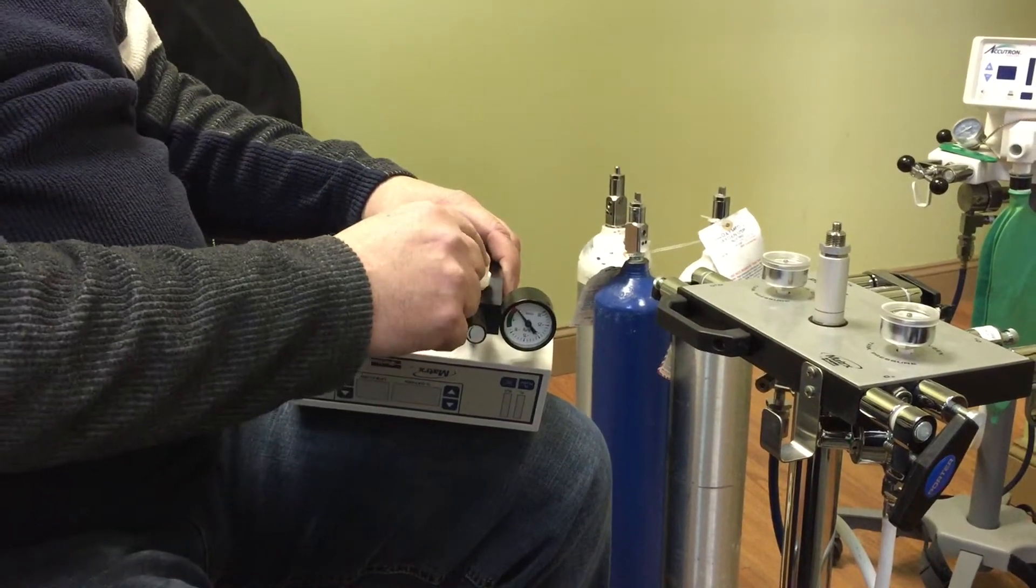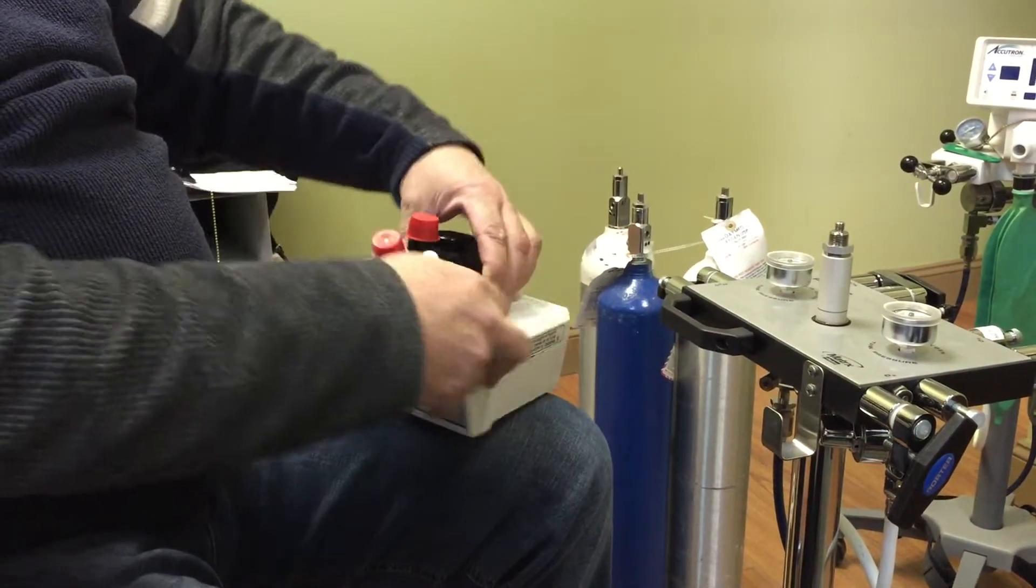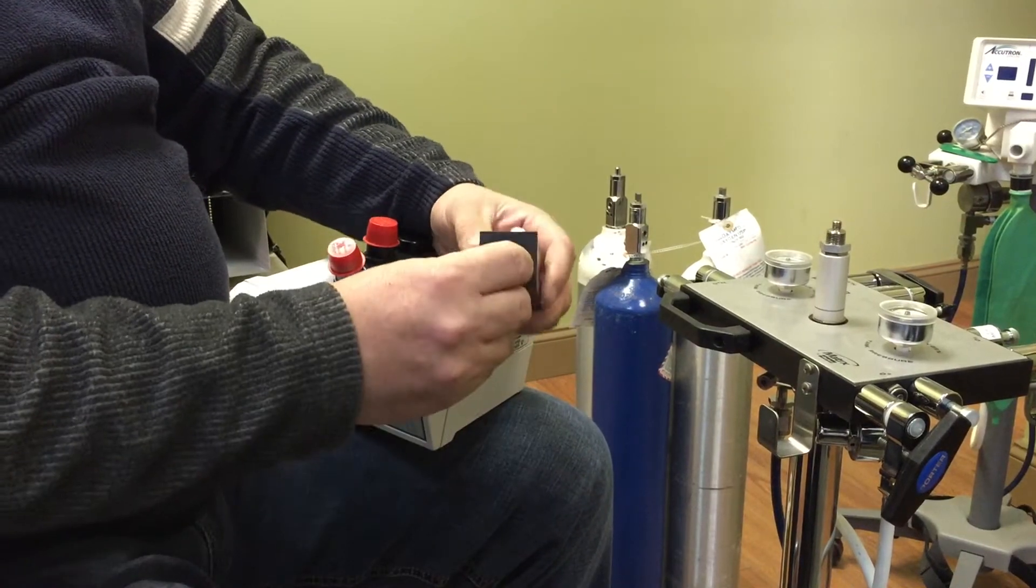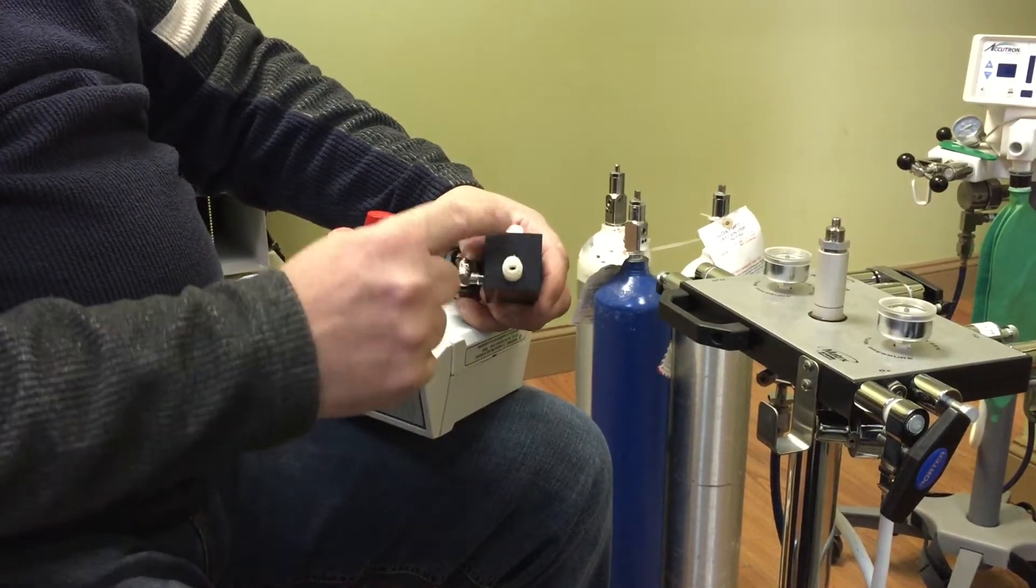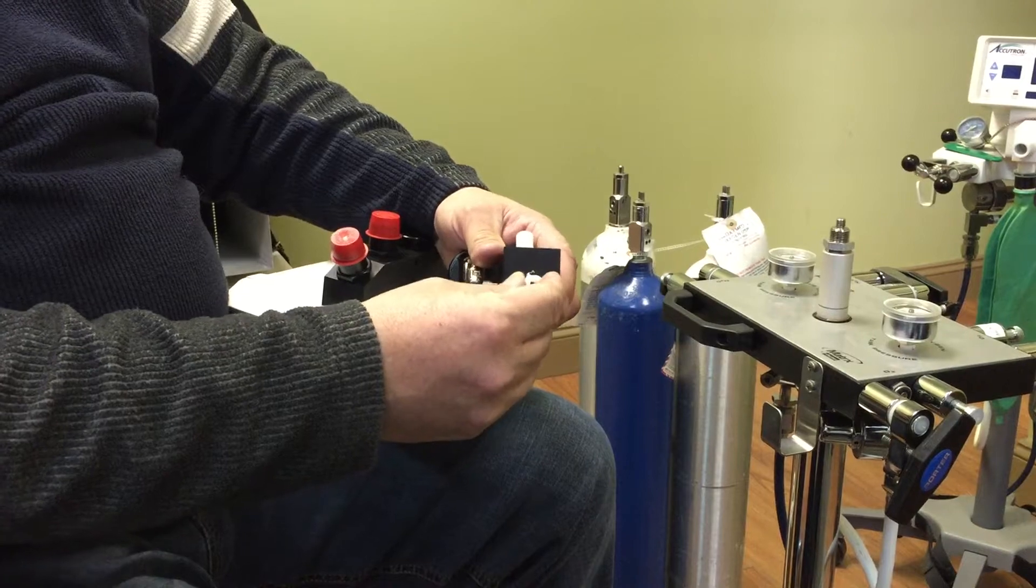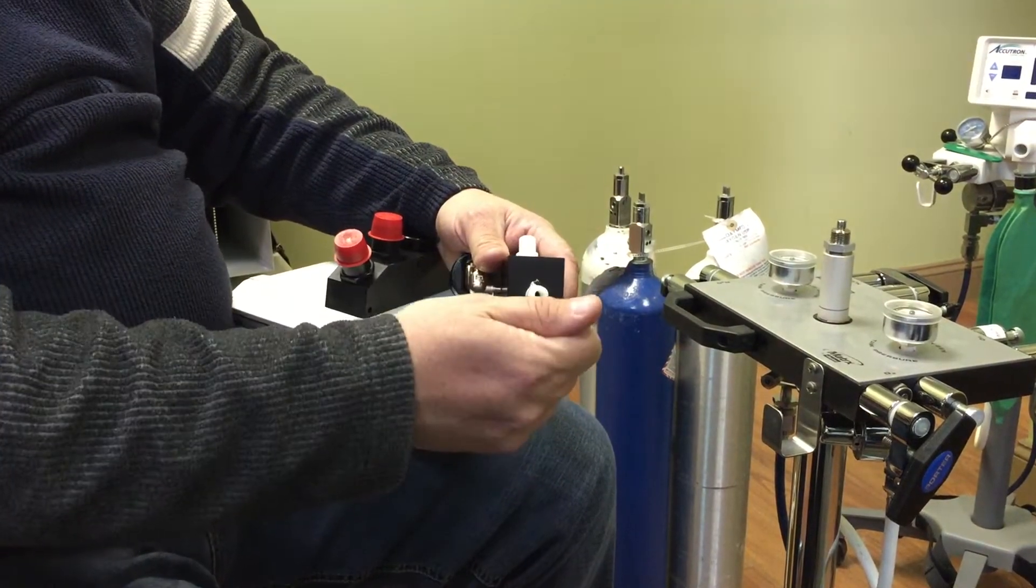This is where you're going to lower and increase the amount of flow. This is where the vacuum line to the patient is going to be hooked up. But in the back, you have here two options. This one here is actually set up to have a high volume, just slip on there, open it up all the way.